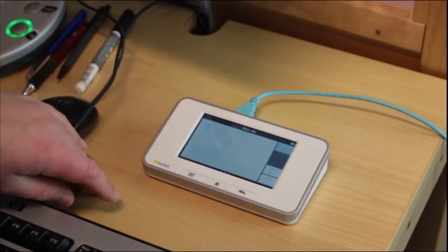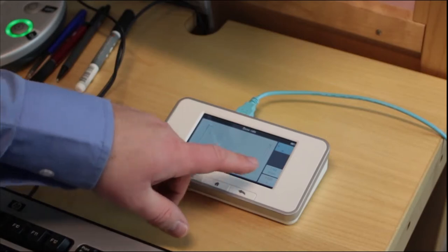And then we take a look at the waveform. We see the pre-pulse and we see the main exposure.